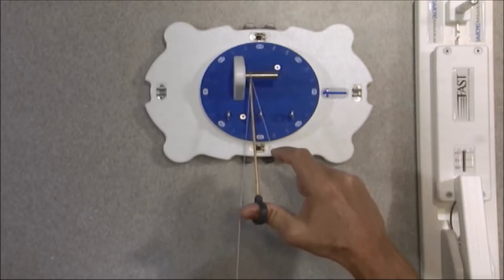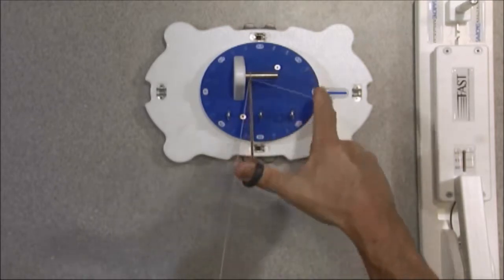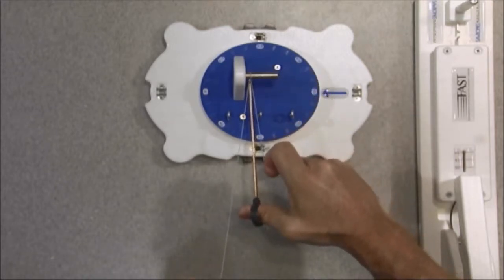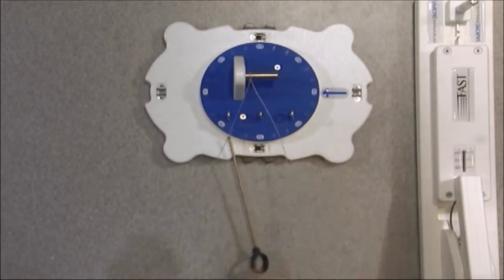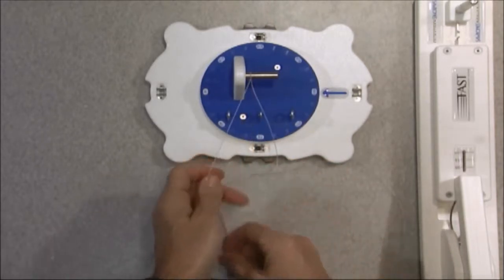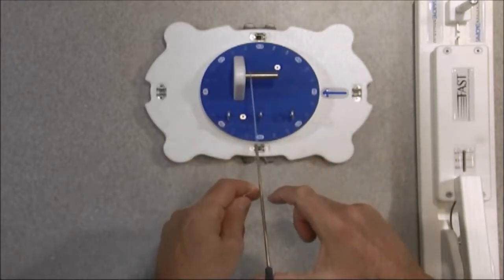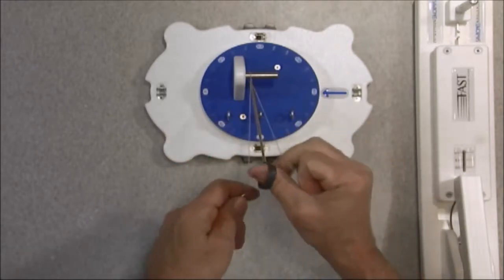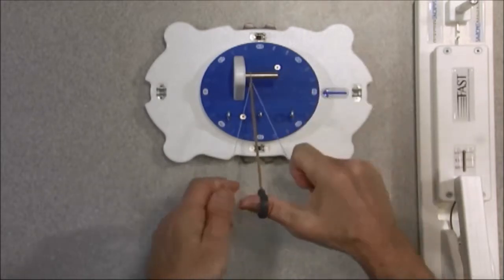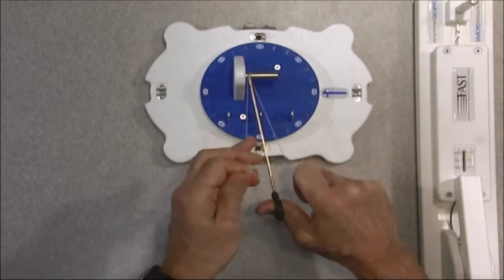So what I've done is I've created my Tennessee slider. I'm going to come down here and cinch this down. I'm going to reset my hemostat a little bit lower down. I'm going to create a hitch. Come down. And you can do this to practice under arthroscopic control or open control. There's a little pass point.